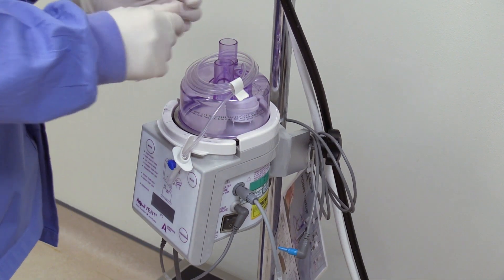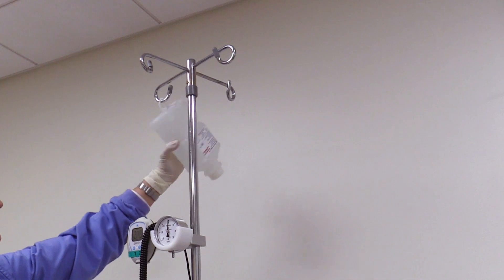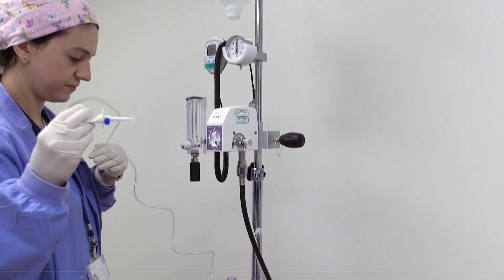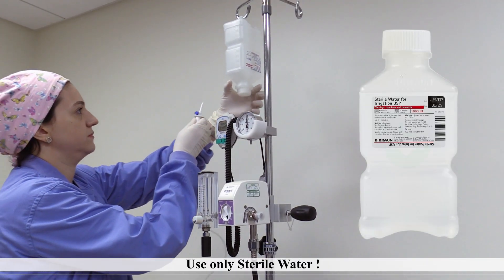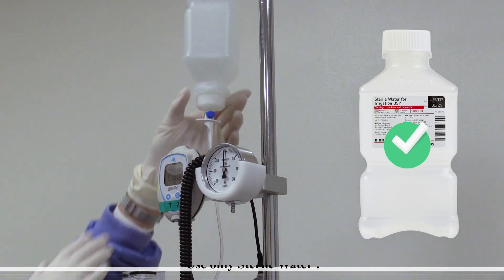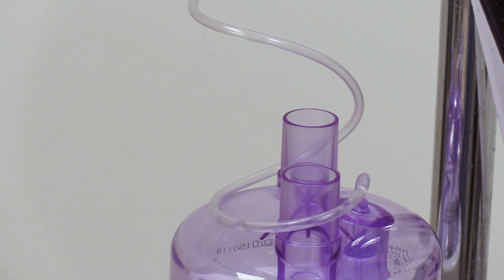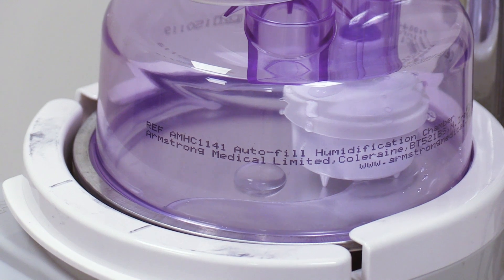First, slide the humidification chamber onto the heater plate and remove the white caps. Next, spike sterile water into the chamber — please remember to use only sterile water for this purpose. The chamber will automatically fill up to 150 milliliters.